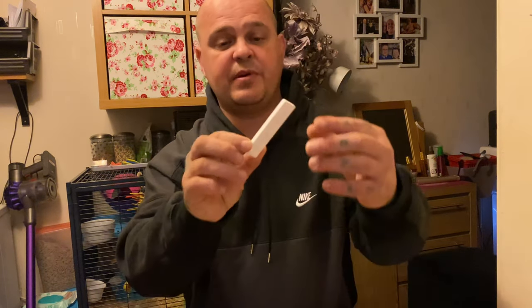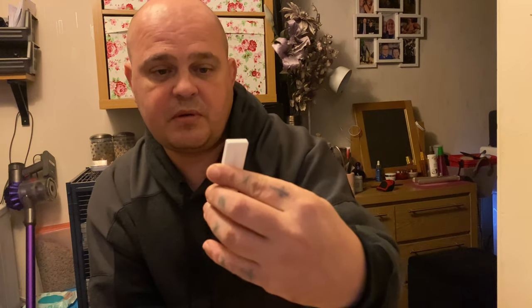Okay, welcome back — it's been 30 minutes. After 30 minutes you'll get a purple line by the 'C,' which I presume means clear. If you get two purple lines — one by the 'C' and one by the 'T' — you need to get in touch with your line manager and go and have a proper COVID test at one of the test centres. There is also a serial number on this, and every time you take a test you're supposed to log your serial number to keep a record of the tests you've done.